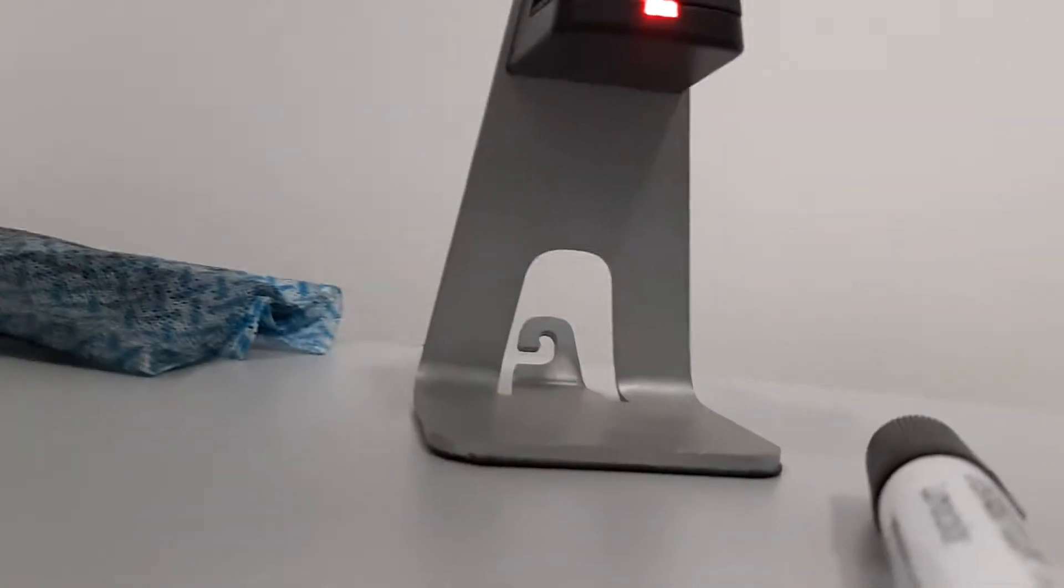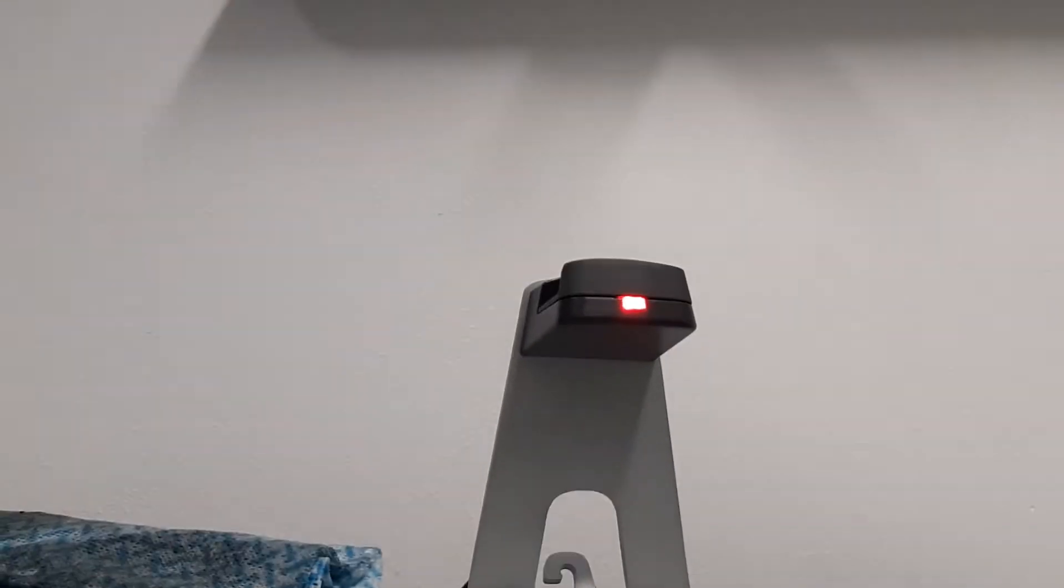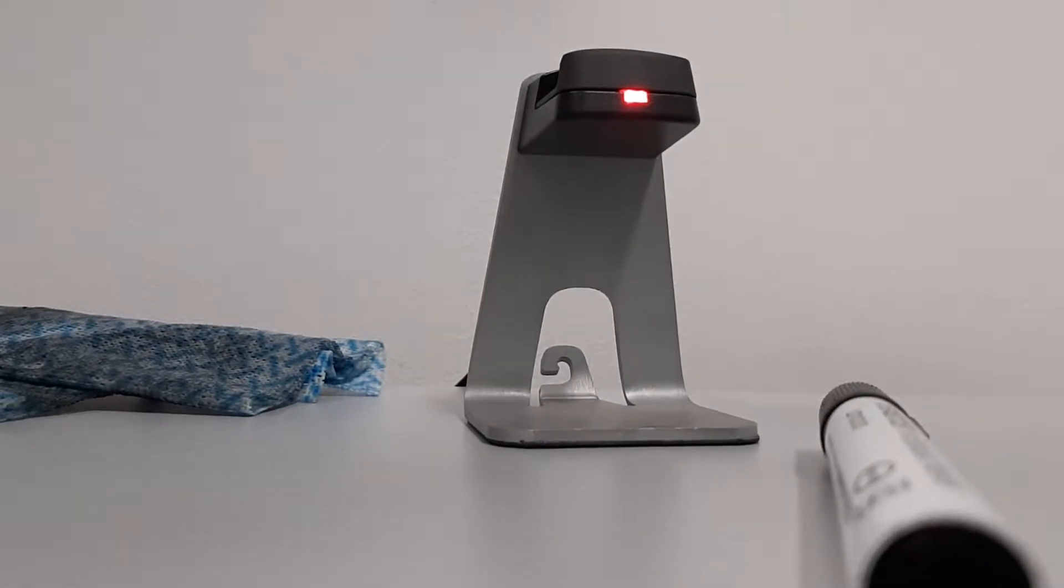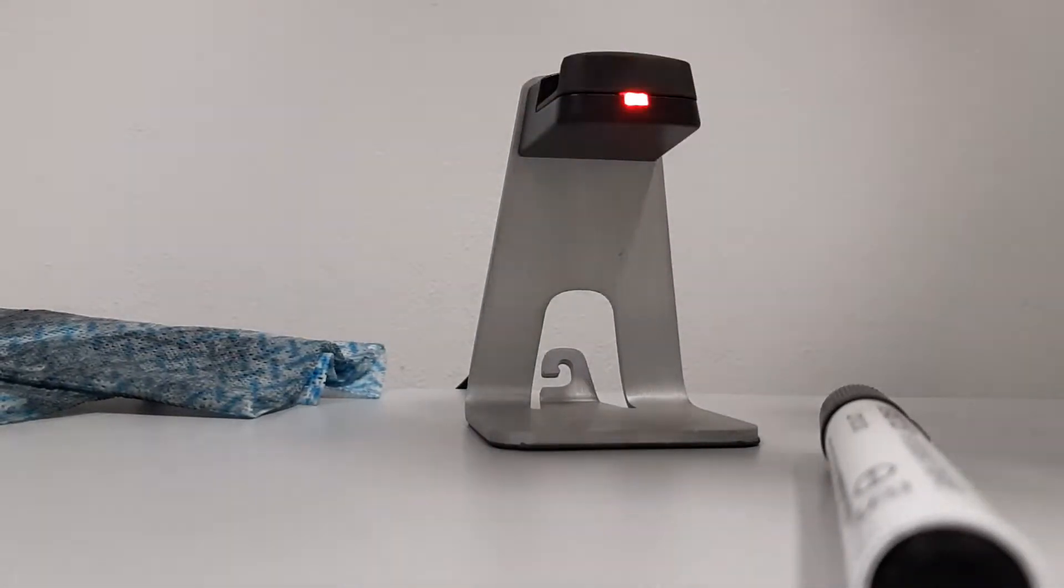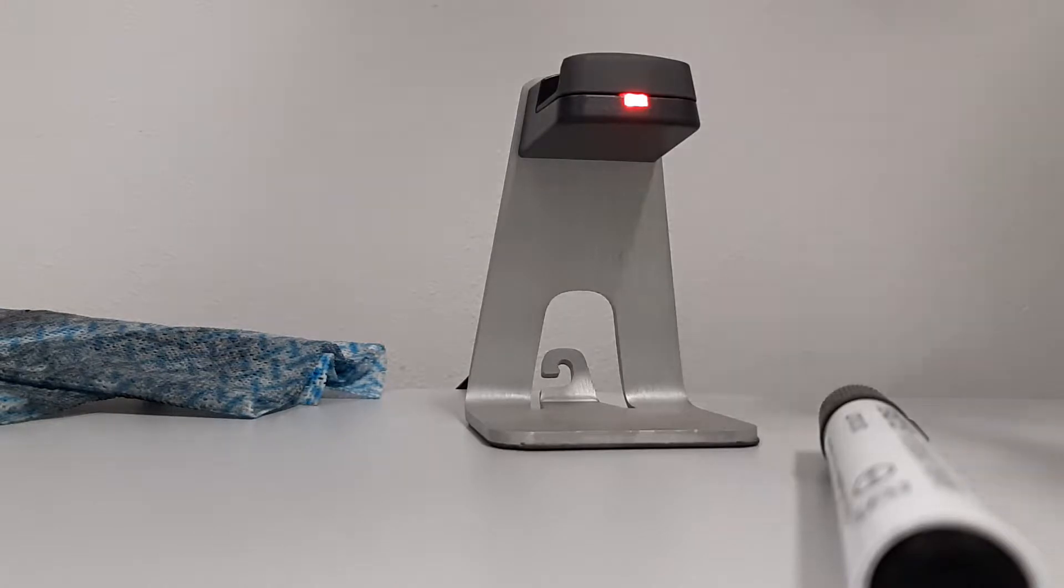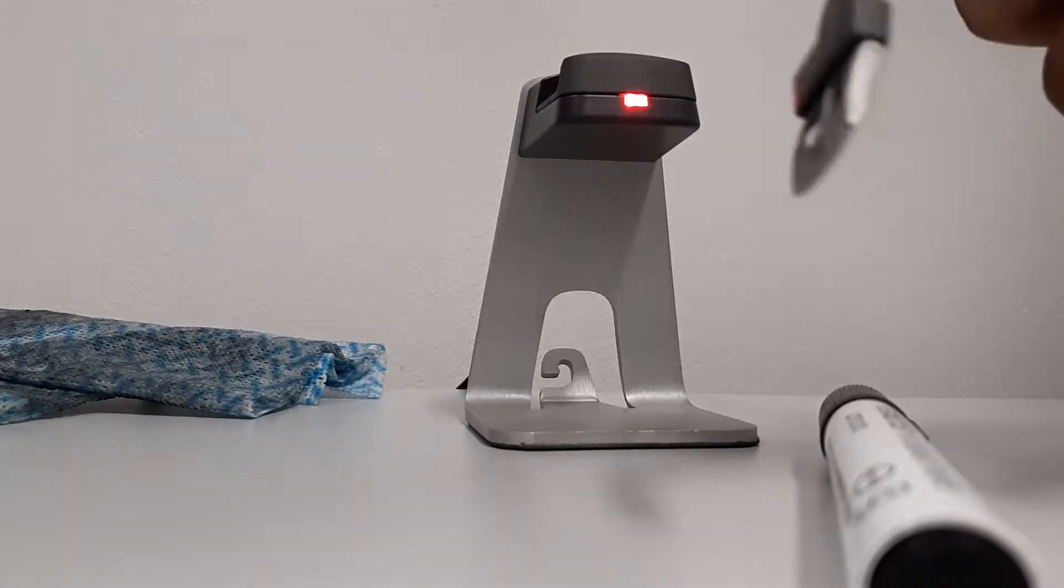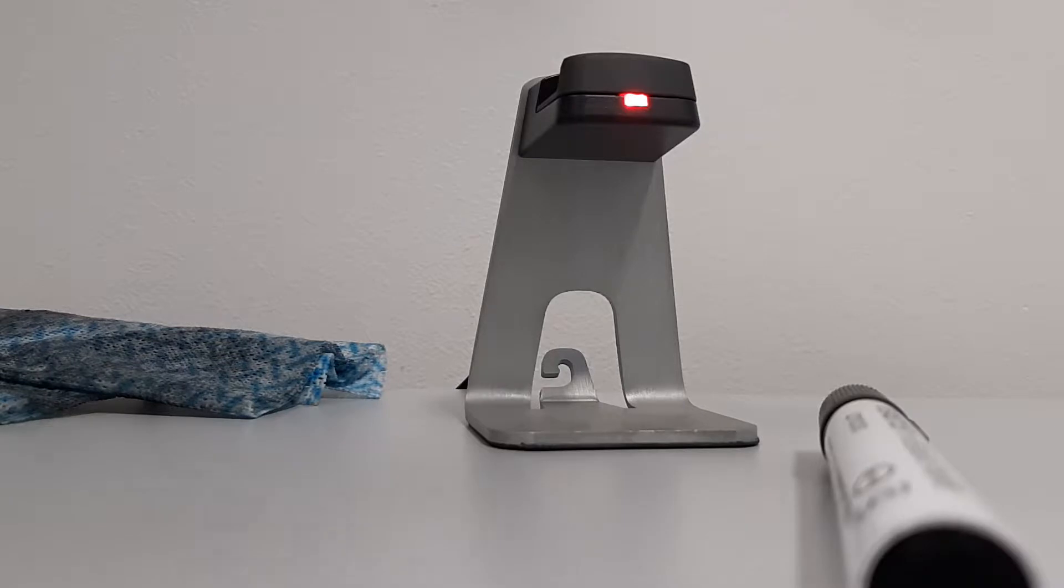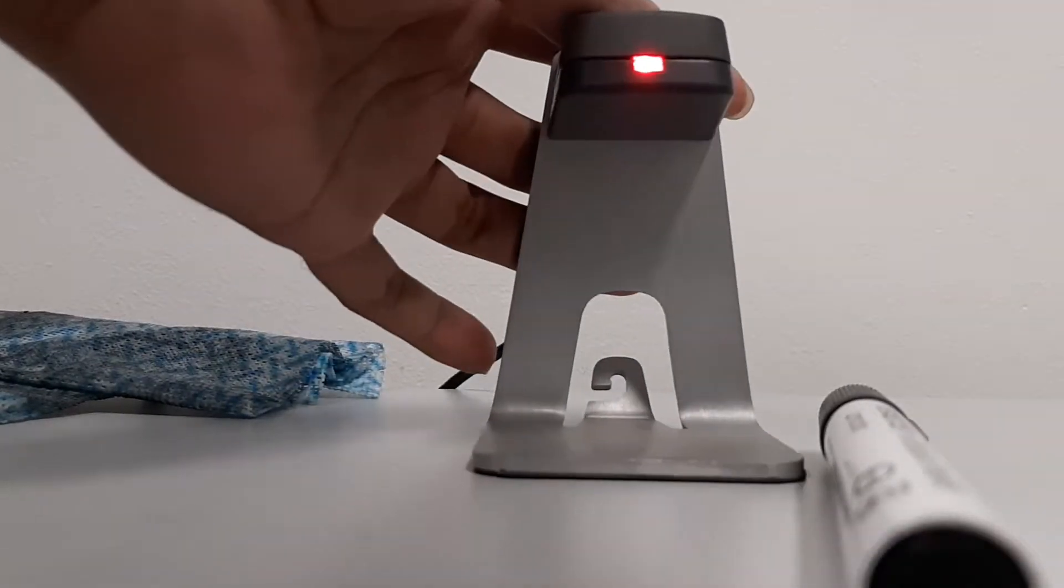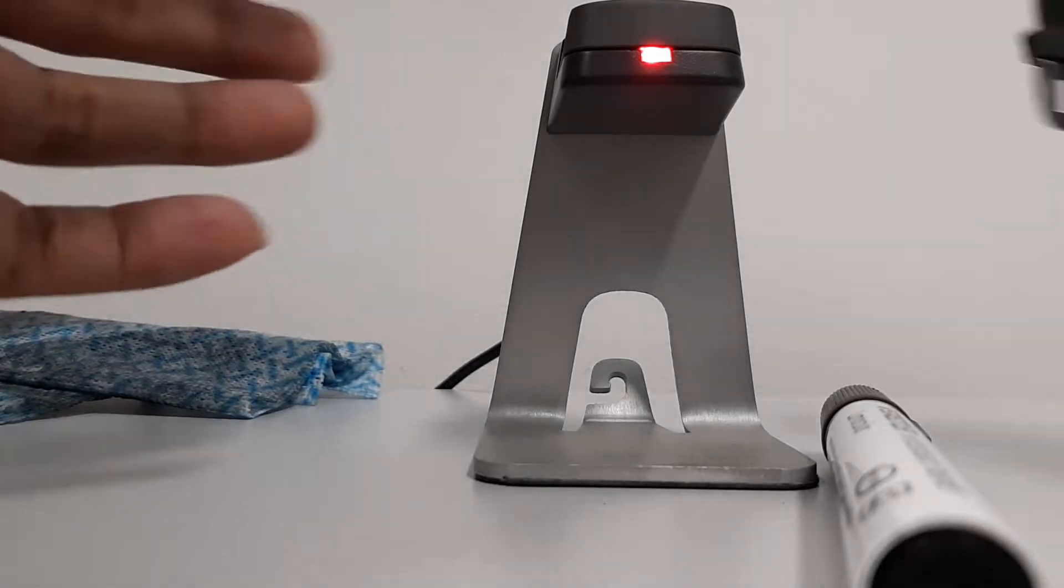I have to put the Actigraph over here, so I am putting it on the dock.